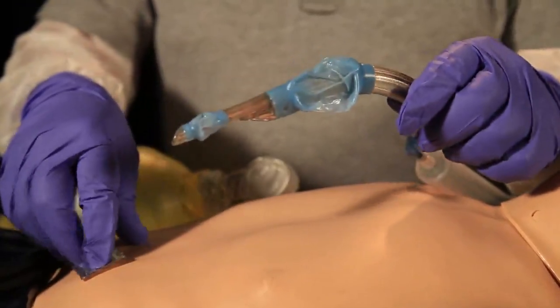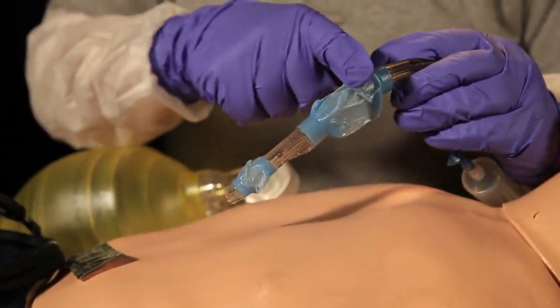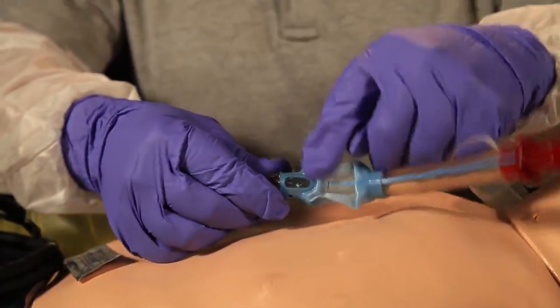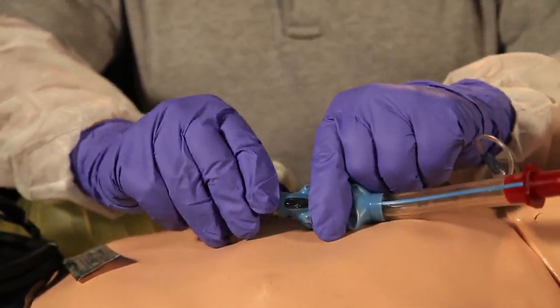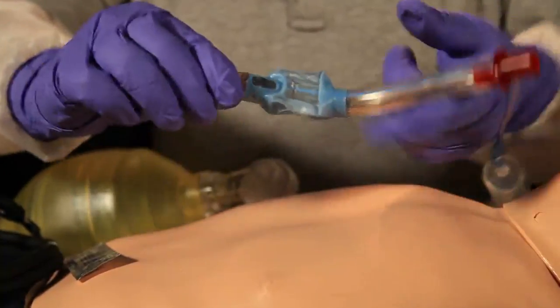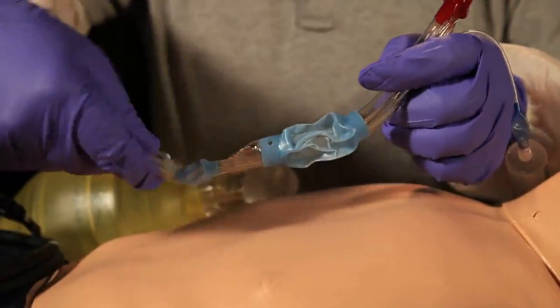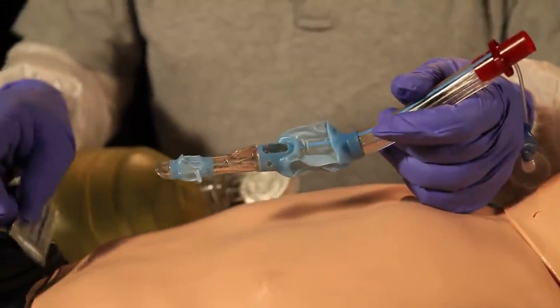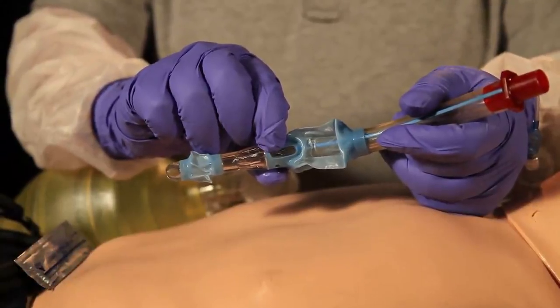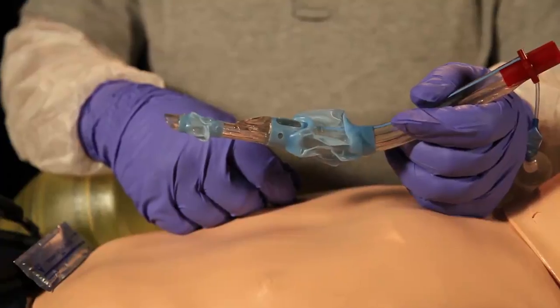The other thing that we want to do is properly lubricate this airway. We want to lubricate this King device back here and on the sides, but we want to pay particular attention not to get a large amount of lubricant at the ventilatory hole here on the King airway. So we would use a lubricant and lubricate the back side and the tip of the King airway, taking care not to get a bunch of lubricant around the ventilatory port. After that, your airway is ready for insertion.